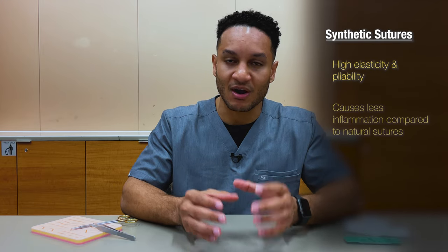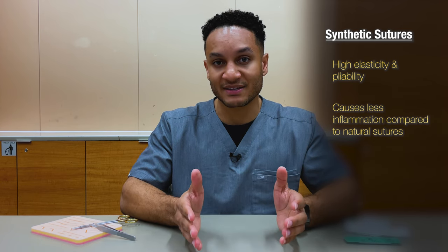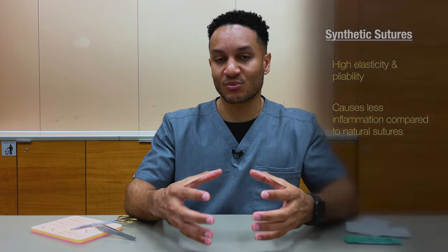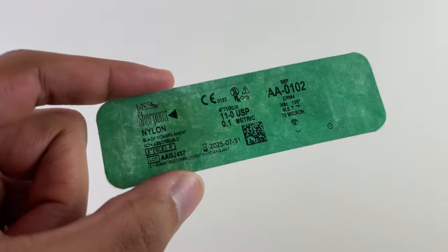On the opposite end we have synthetic sutures. Synthetic sutures tend to have a little bit more elasticity compared to natural sutures, which are often more rigid. The elastic nature of synthetic sutures means that when the wound expands and there is tissue edema, the suture will actually expand with the wound and then contract as the tissue edema resolves. Examples of synthetic suture material include PDS, monocryl, and nylon sutures. When choosing synthetic versus natural, consider the absorption profile and tensile strength first — natural sutures are usually absorbed more quickly, whereas synthetic sutures tend to have higher tensile strength and are more reliable for wound approximation.